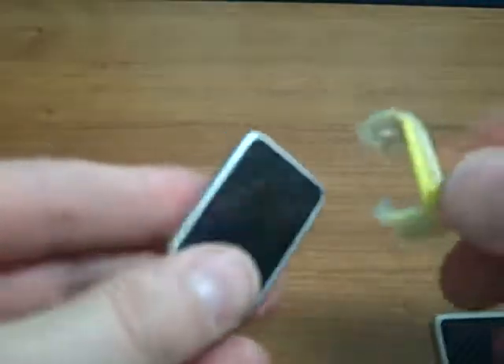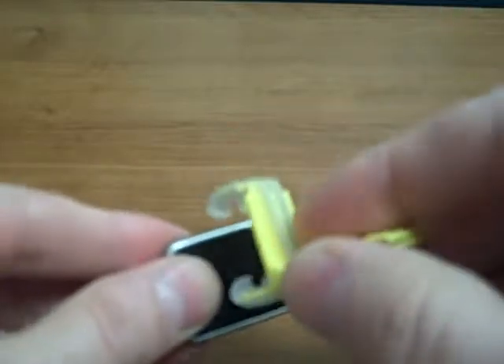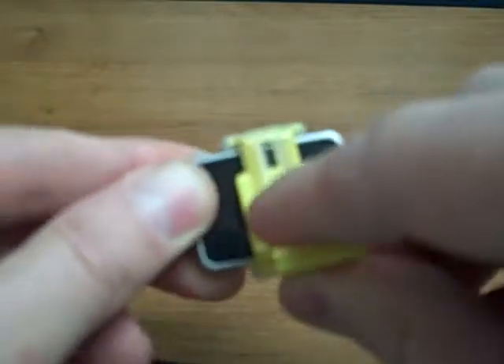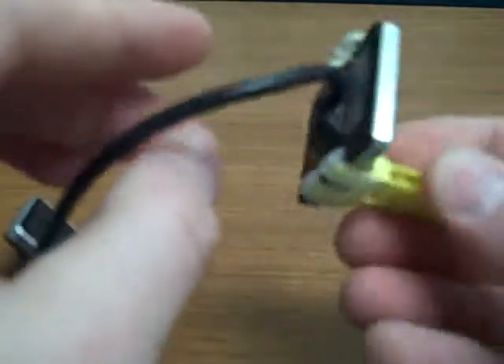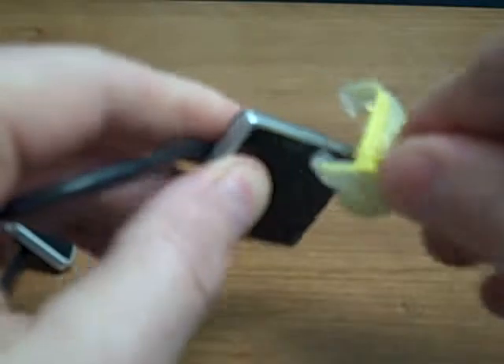For each indication, there is one specific bite block. The yellow is for the posterior or horizontal position, and that will work with your size 1 or the size 2 sensor. The clip adjusts out to allow for it. It has a nice grip and is very fast loading.